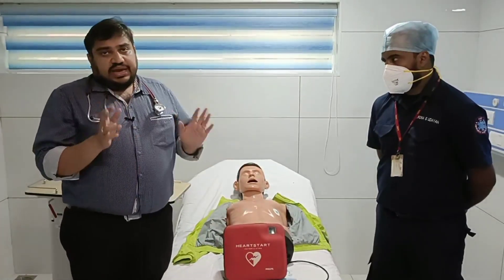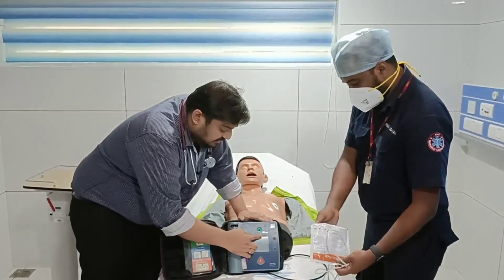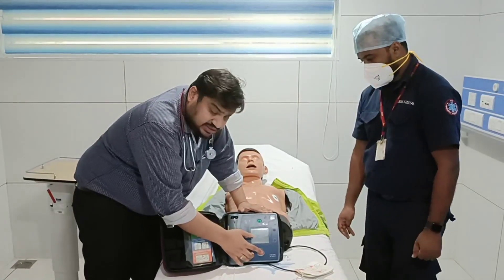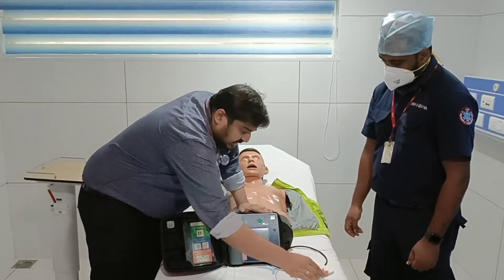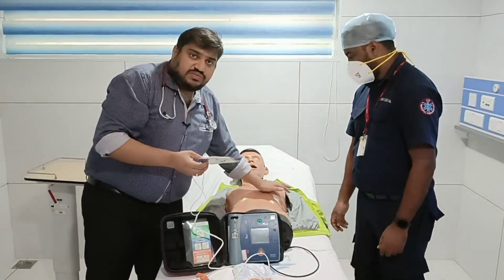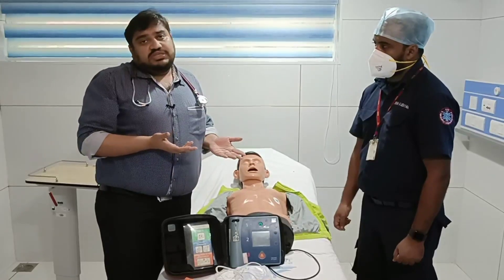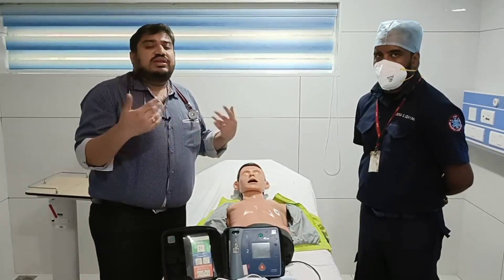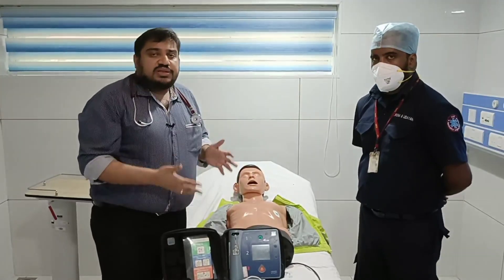So that is how to use an AED. There will be different types of AEDs, but the basic parts are the same: a switch on/off button, a display screen showing everything that's happening, an area with the shock button, and a flashing light where you connect the connector. You have two paddles — one over the right side and one over the left side of the chest. Once attached, switch on the machine and wait for prompts. The machine will guide you through recognizing rhythm, continuing CPR, or delivering a shock.